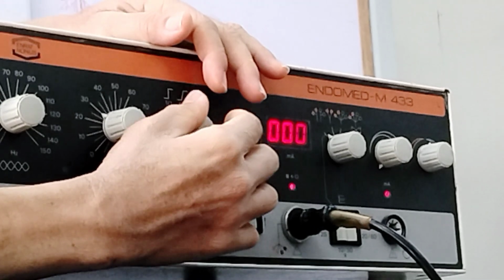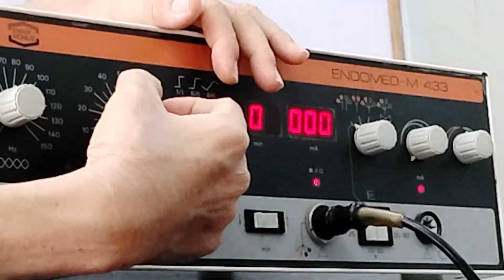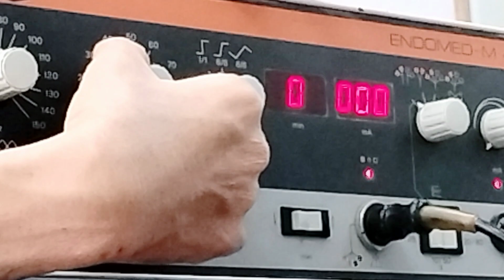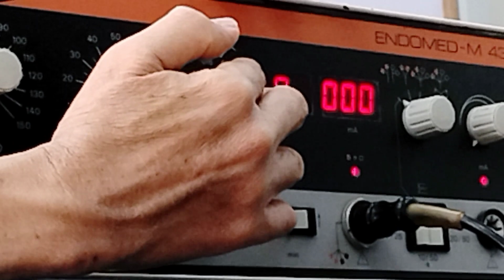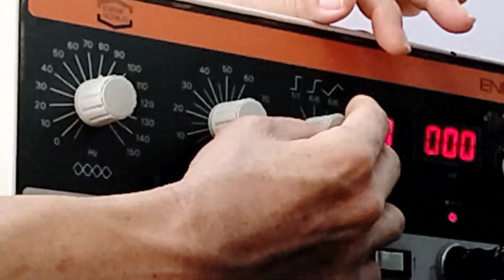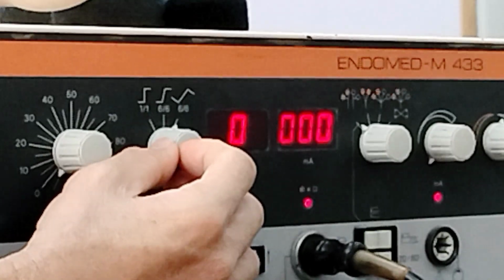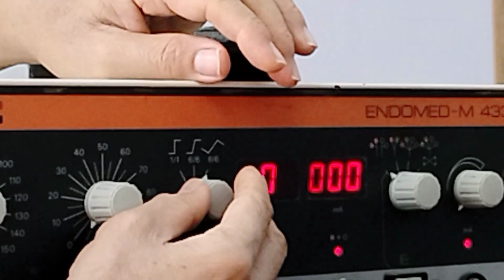So we adjust this one if ever your sweep frequency or spectrum frequency is not 0. So if the frequency varies, you have to adjust this one. But if ever your sweep frequency is 0, so there is no variation in frequency, you don't need to adjust this anymore. It has no use. It is only used if the frequency varies. So in regards to the spectrum program, the function there is to really regulate the way the frequency varies, however abruptly, how fast it changes its frequency.